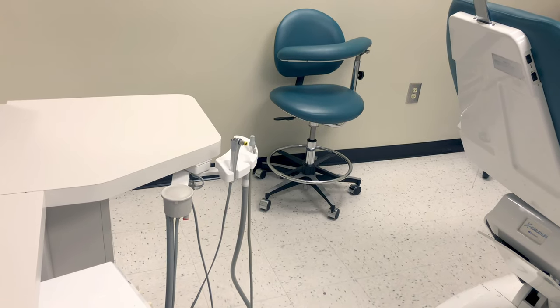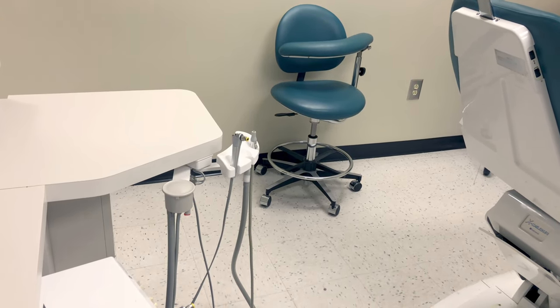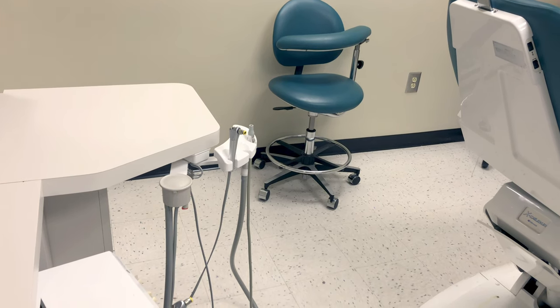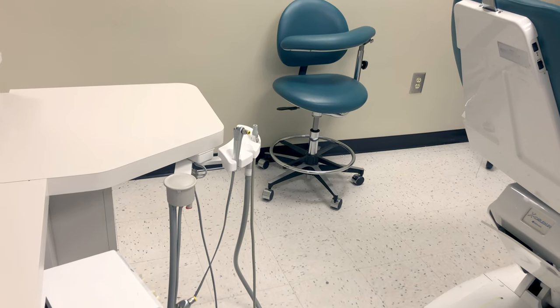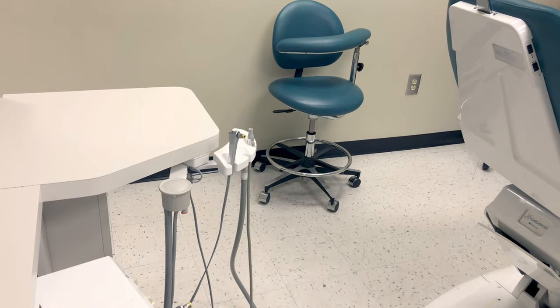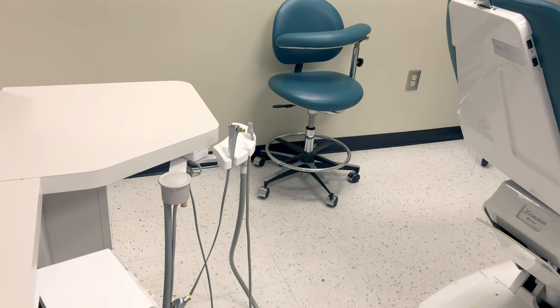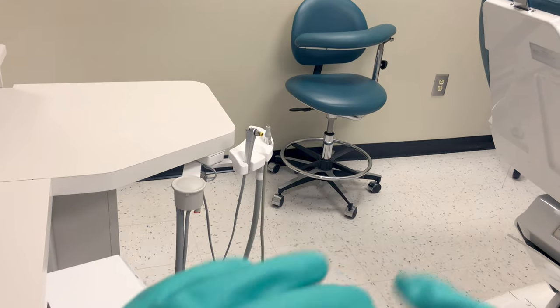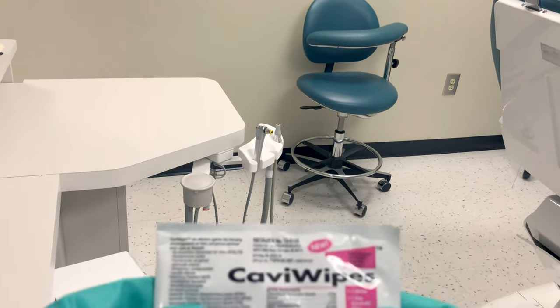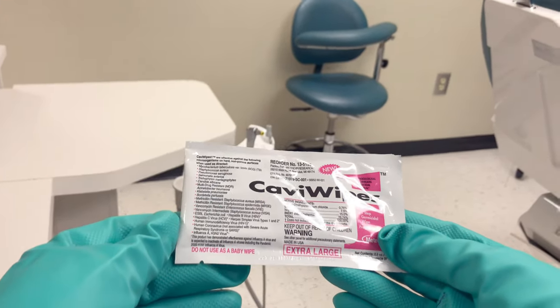This video will demonstrate how to use the wipe-discard-wipe method when disinfecting your treatment rooms. After the patient leaves, we need to get the room safe and ready for use on the next patient. To do that, we will use an intermediate level disinfectant. There are a bunch of different options on the market — Caviwipes is a popular option.